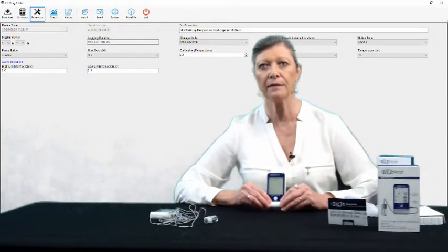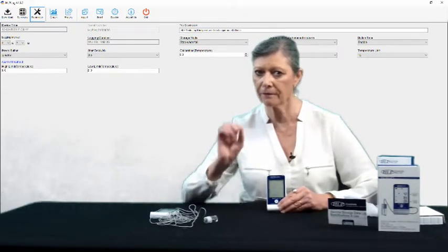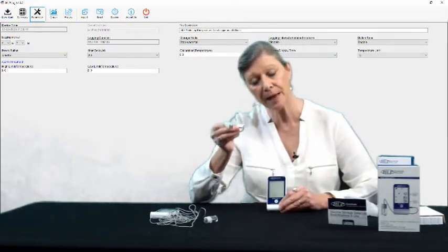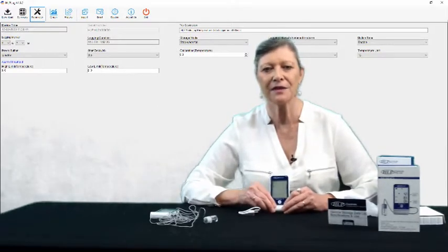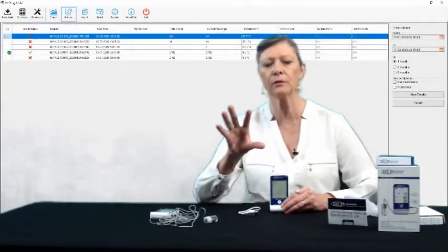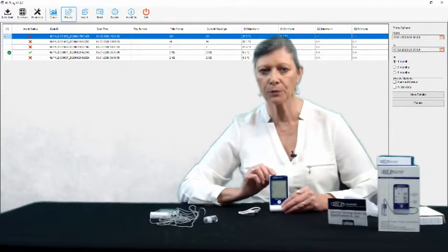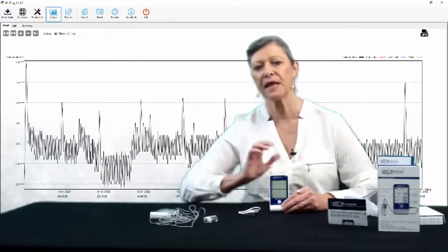You can use it straight out of the box, but we recommend that you download and install the software on your computer first so you can name the unit — for example, call it 'Fridge 28 out the back.' That way all of your data and graphs will have that name on them, identifying which fridge they were for. You plug it in using the supplied USB cable into the side of the unit and into your computer, and the software will automatically find the unit. If it's already been in use, the software will download the data, display it on your screen, and save that file for you. If it's a first use, it will sync the time and date from your computer to the unit so all your data has the correct time and date.